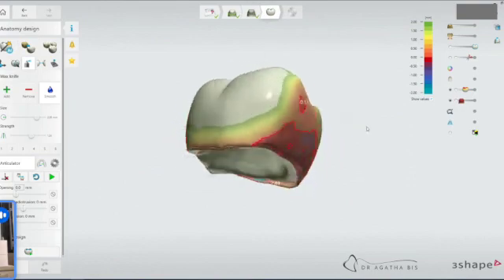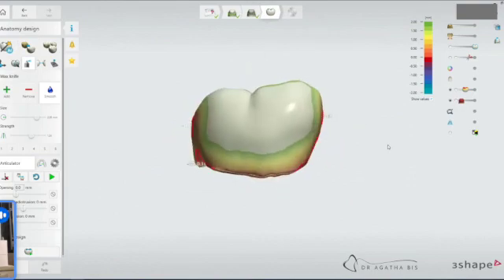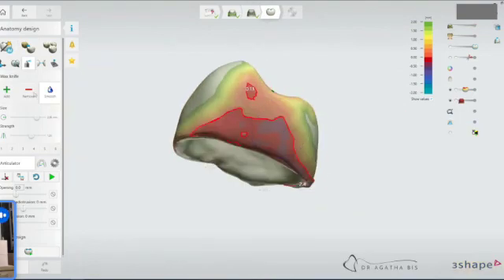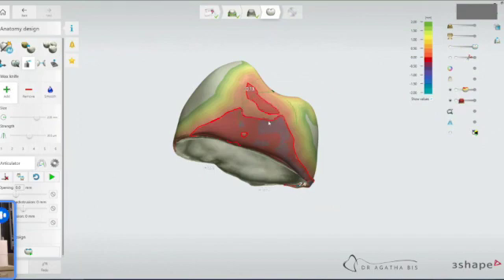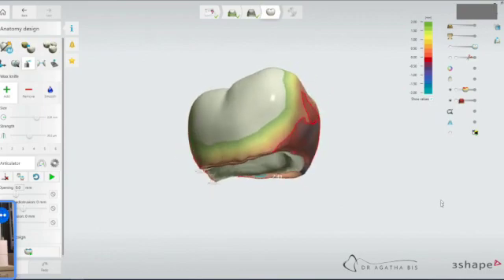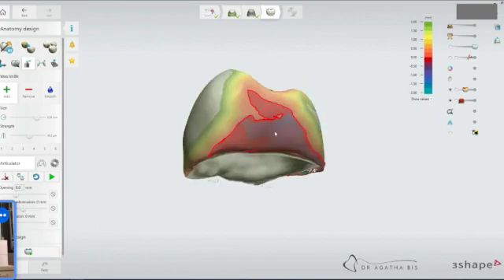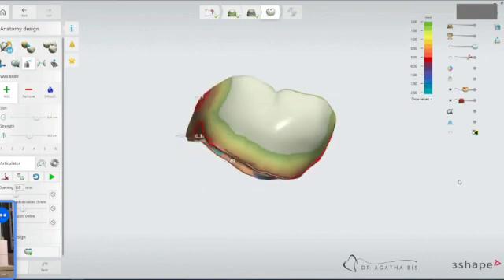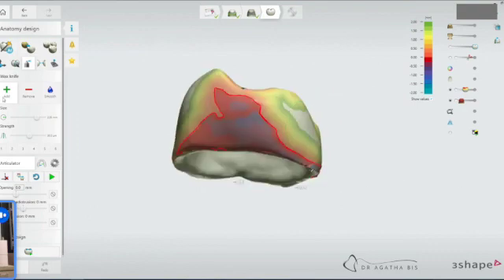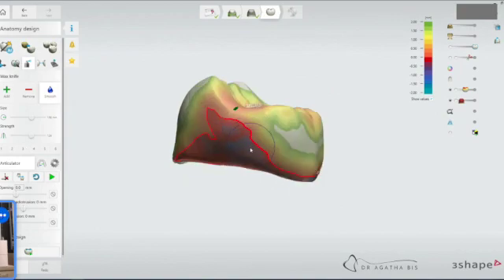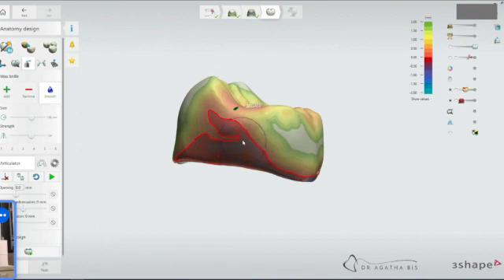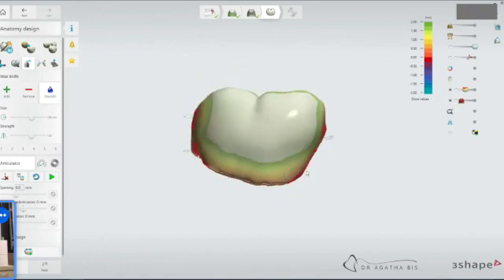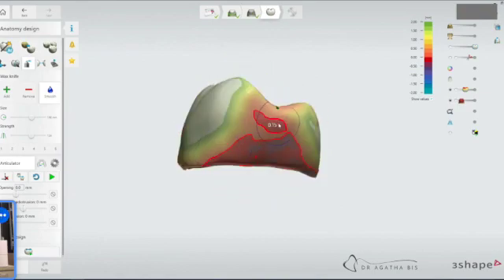And now we've got a nice good contact. Minus 0.13 is still really, really good. Now we're going to look at the other side and same thing. It's really lumpy. So let's just smooth it out. But notice I've lost the contact where I wanted it. So we're going to add a little bit to here. Then I'm going to pull it through to the gum line. I can always bring it down again if I want. But I want that contact in here. Then I can smooth. Go back to smooth and reduce the size.